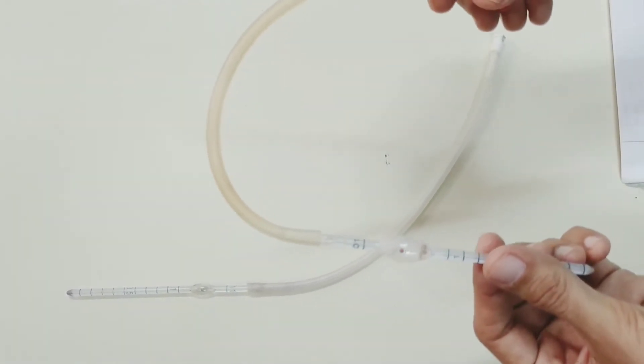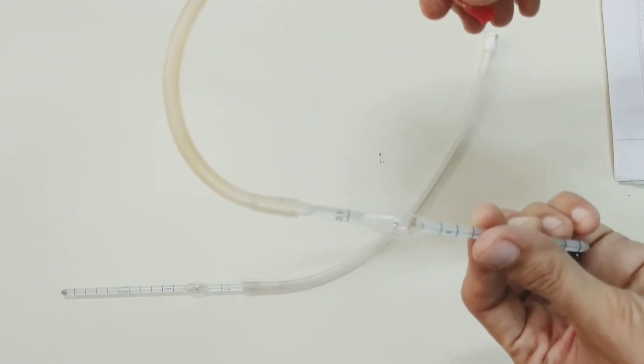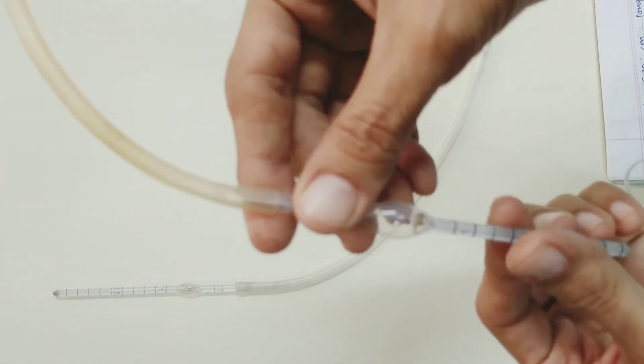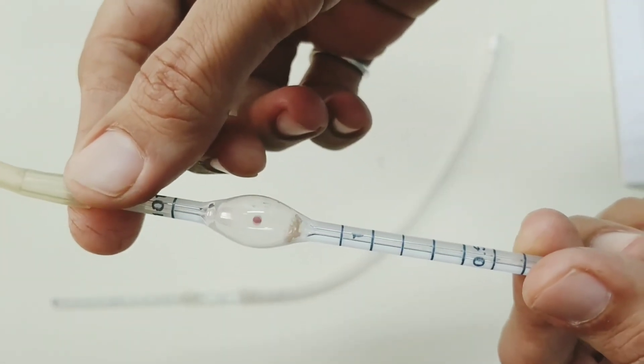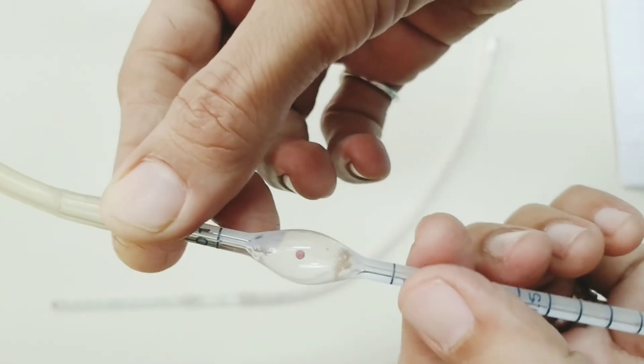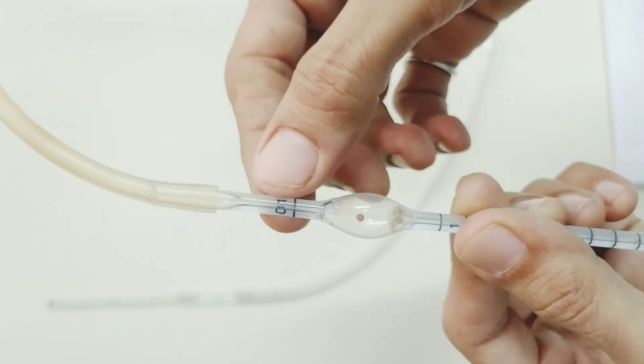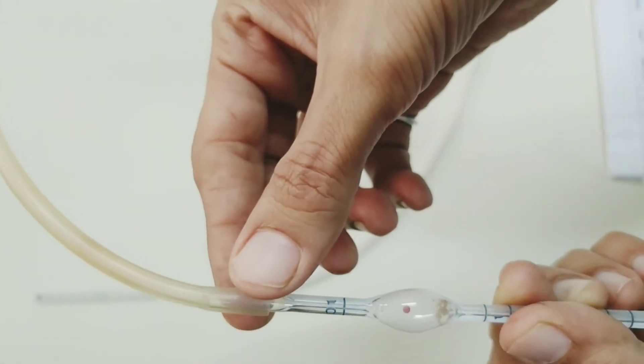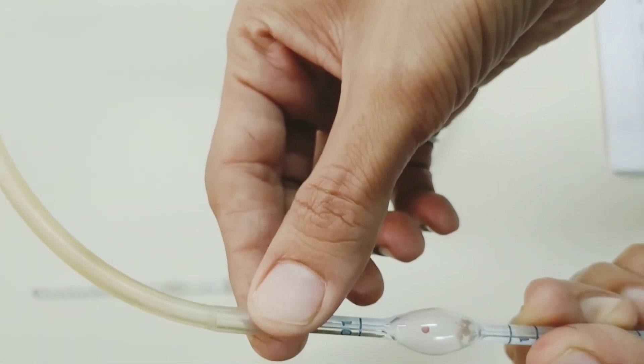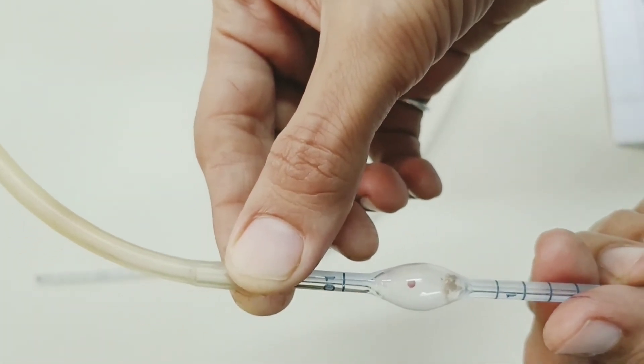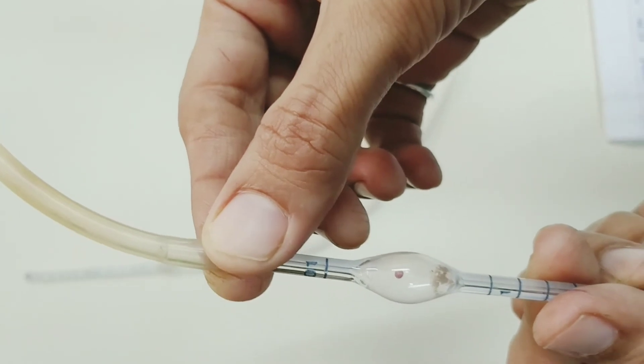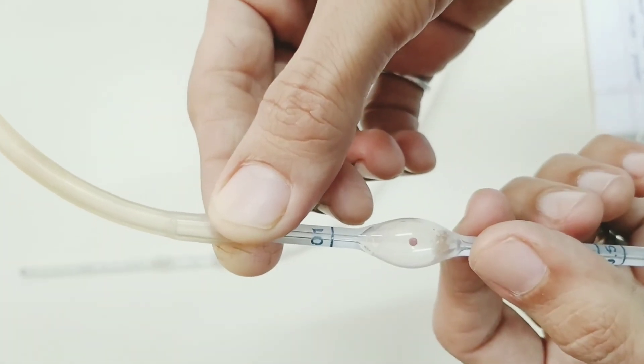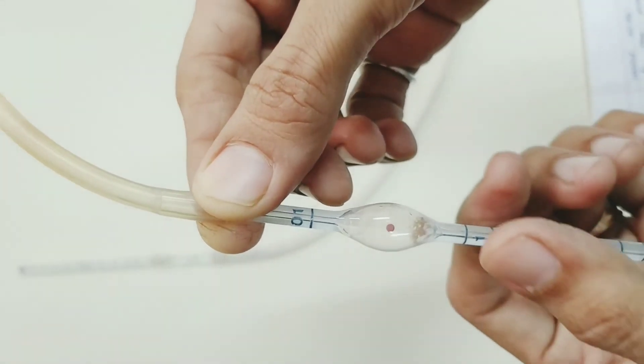Principle underlying use of diluting pipette: It is important to understand that the numbers marked on the pipette - in the RBC pipette 0.5, 1, and 101 - do not indicate absolute or definite amount or volume in terms of units like cubic millimeter or microliter. This is a mistake made by students. These figures only indicate relative values - the values are present in relation to each other.